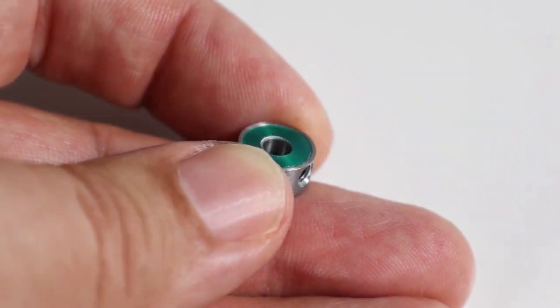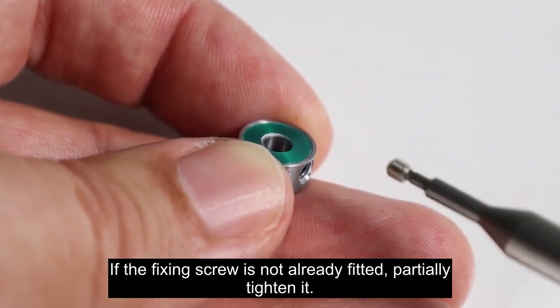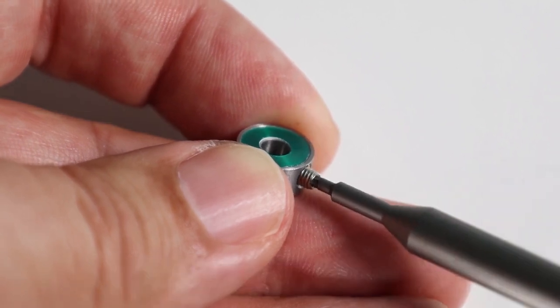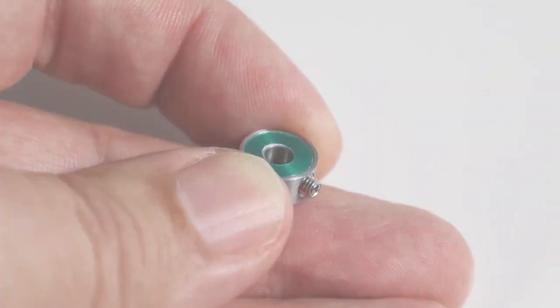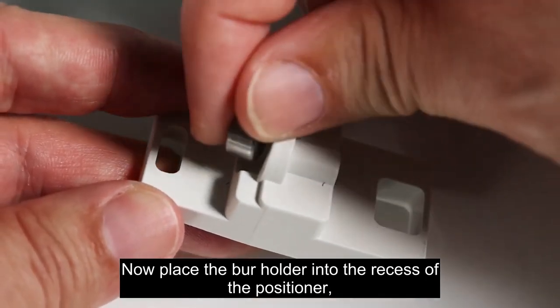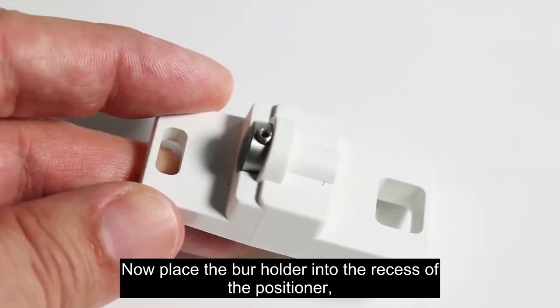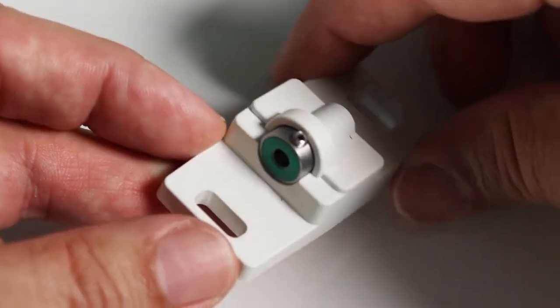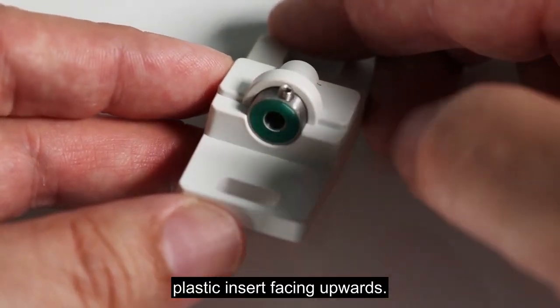If the fixing screw is not already fitted, partially tighten it, but not fully. Now place the burr holder into the recess of the positioner, plastic insert facing upwards.